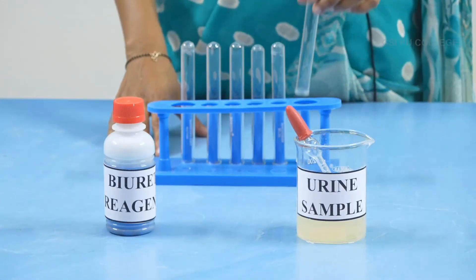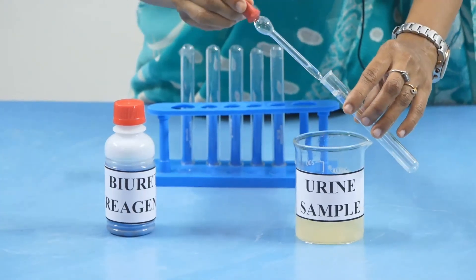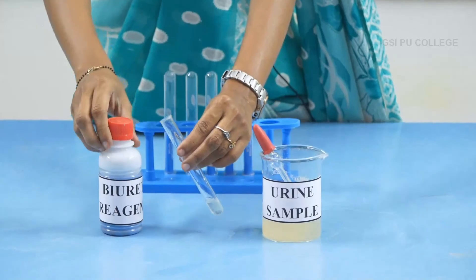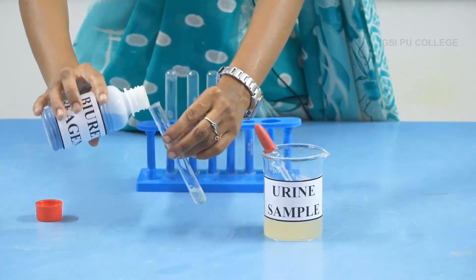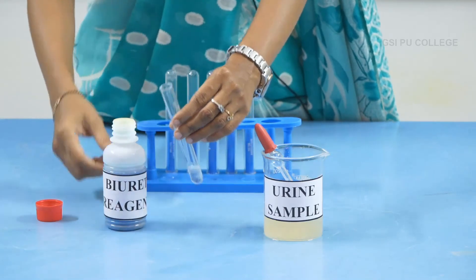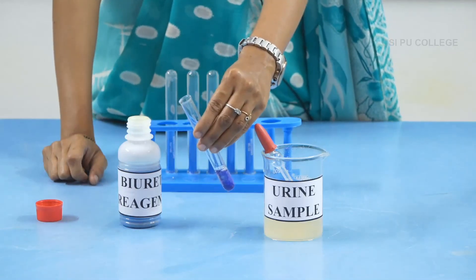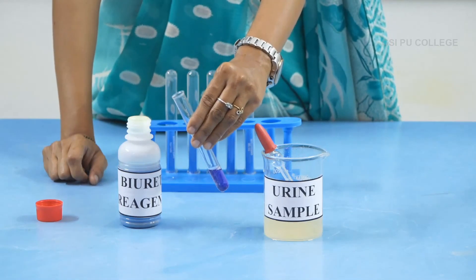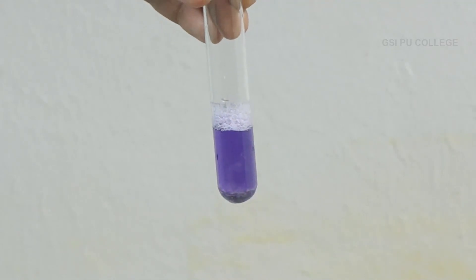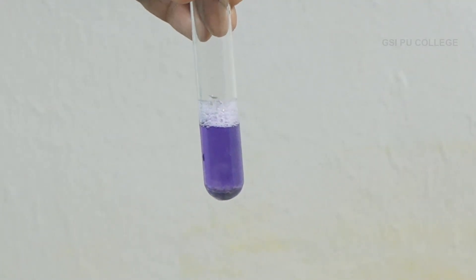For this experiment, take a clean test tube and add a few drops of urine sample. Then add a few drops of biuret reagent. If the urine contains albumin or protein, it gives a violet colour. In this test tube, you can see the urine has albumin protein, because of which, when added with biuret reagent, it gives violet colour.